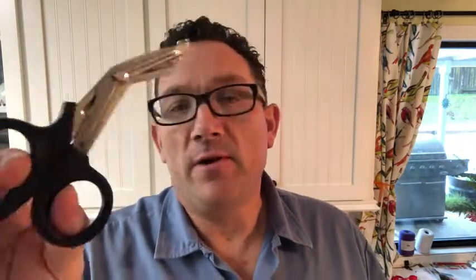These things are so beefy that you can use them not just for cutting seat belts or cutting jeans off of a person, which is what they're designed for — they're designed for the medical field. But you can use them for so many other uses. They will cut a penny in half; if you look online there are videos that show them cutting a penny in half. It's absolutely amazing.